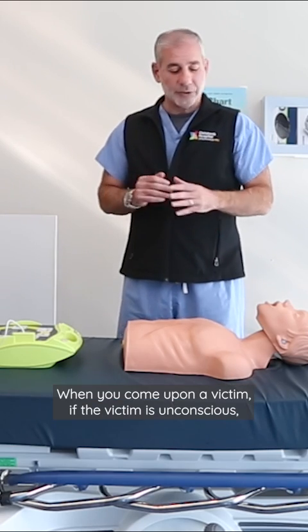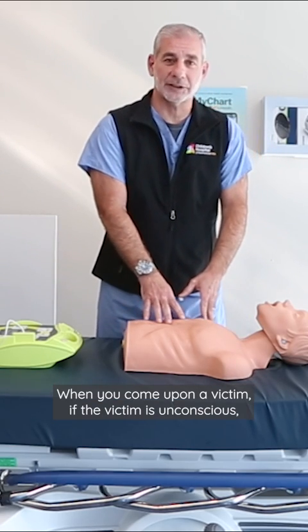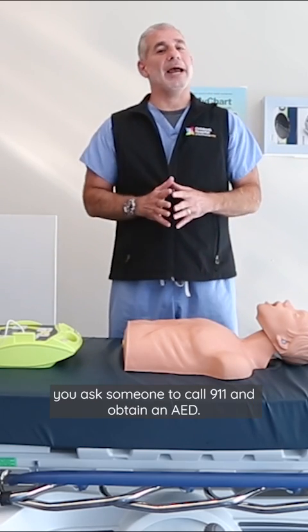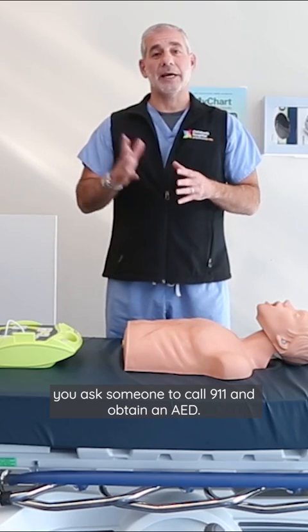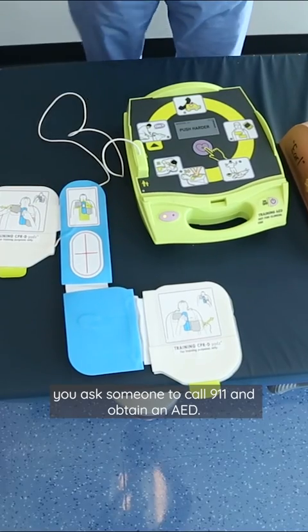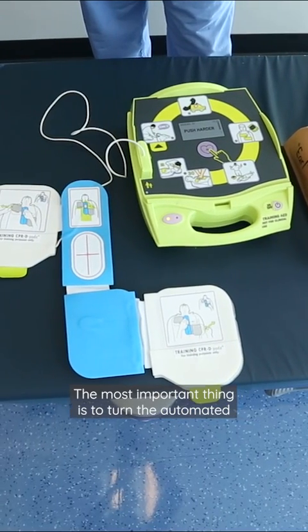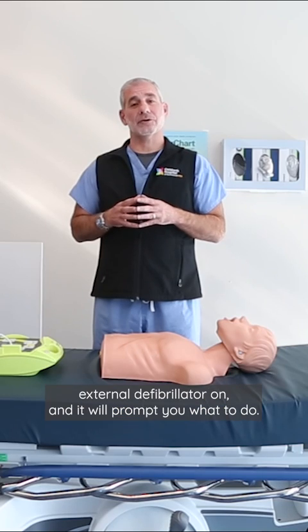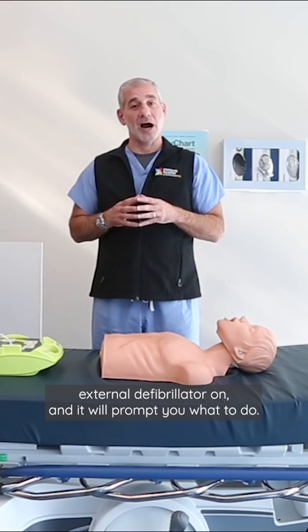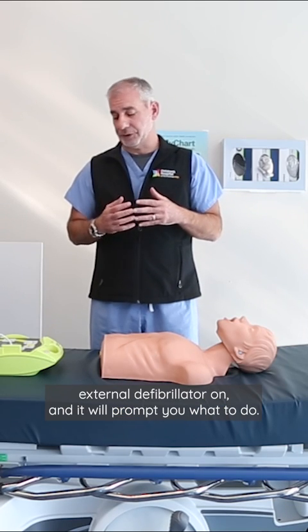When you come upon a victim, if the victim is unconscious, you ask someone to call 911 and obtain an AED. The most important thing is to turn the automated external defibrillator on and it will prompt you what to do.